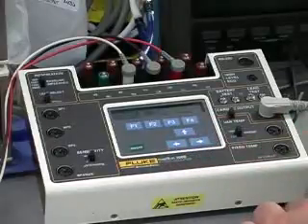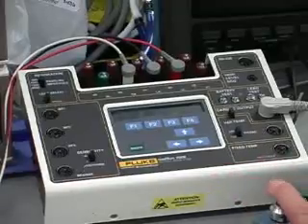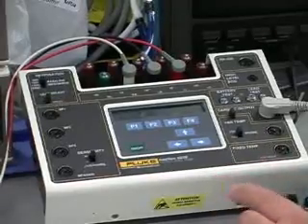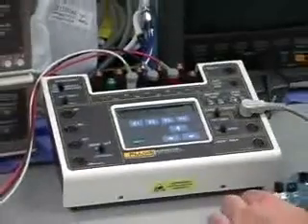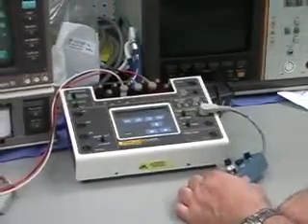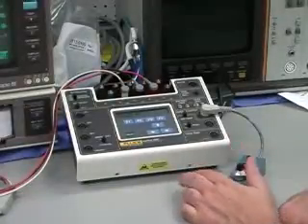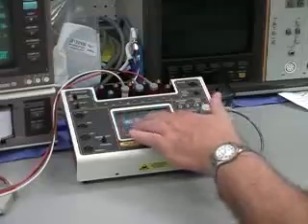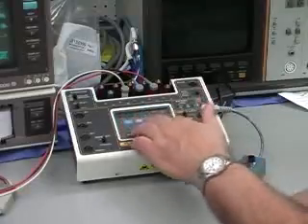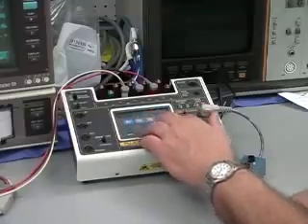Cardiac output, same type of thing here. For thermal dilution, we've got fixed values up to 7 liters per minute, and also we can run cardiac output trends. And there are also the artifacts, as you've seen before in other devices, for both ECG and also for blood pressure.